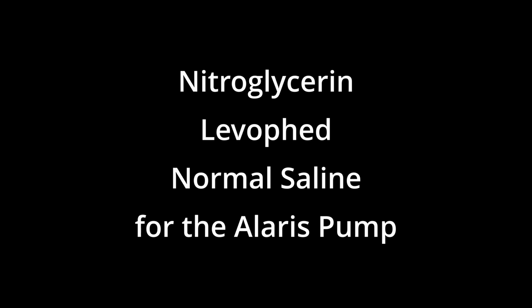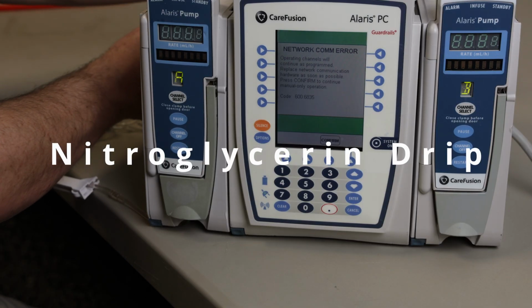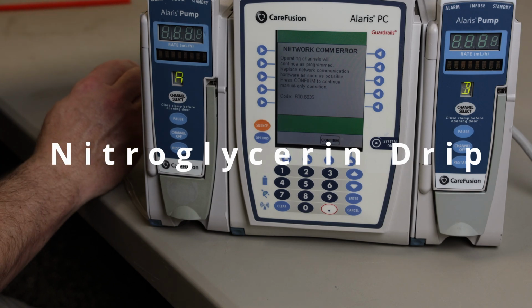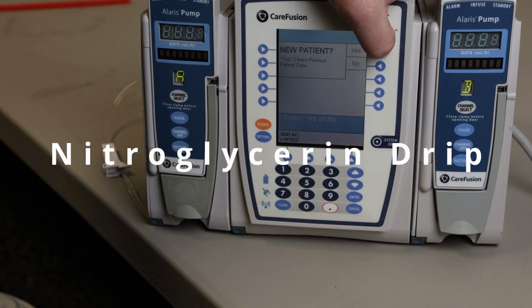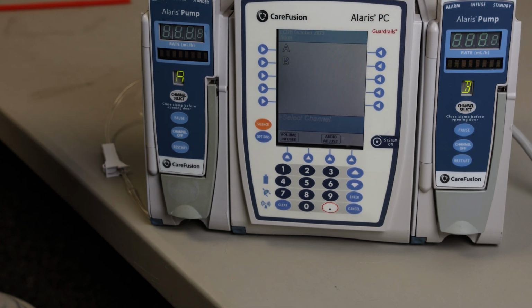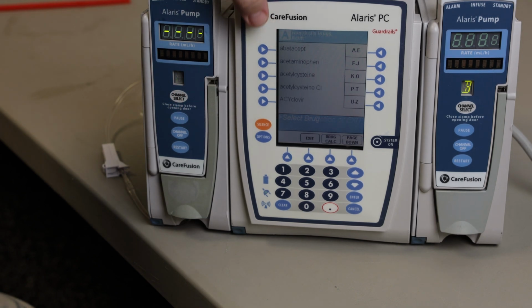We're going to review nitroglycerin, Levophed, and normal saline for the Alaris pump. First, we're going to start with nitroglycerin, and we're just taking under the assumption that it is a standard concentration for nitro. If it is not, then what you'll have to do is go in and actually use the guardrails to change your concentration. Select your channel, go to guardrail drugs.